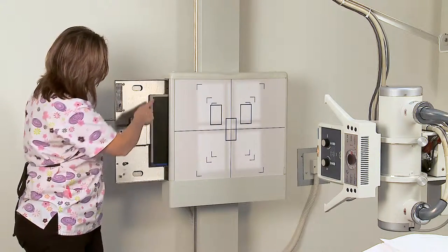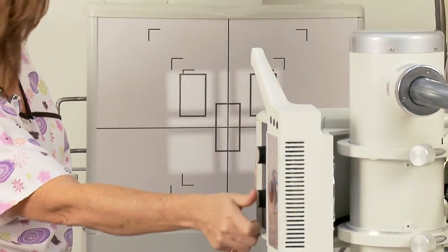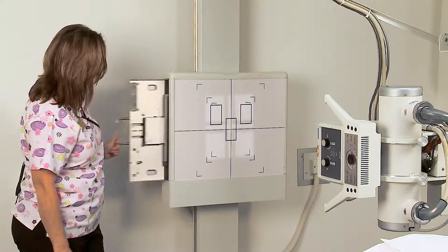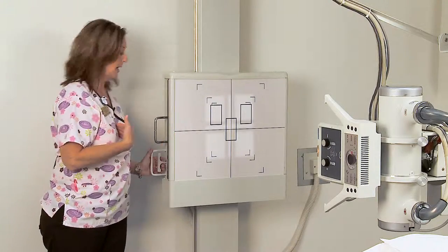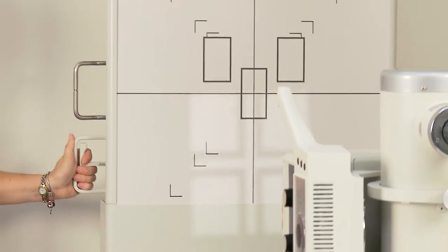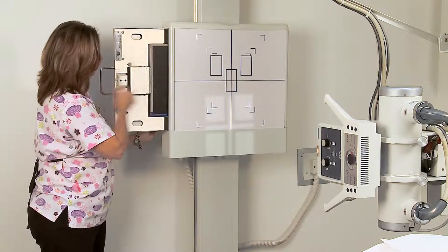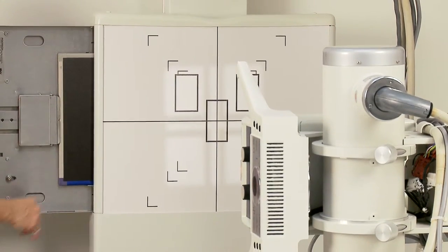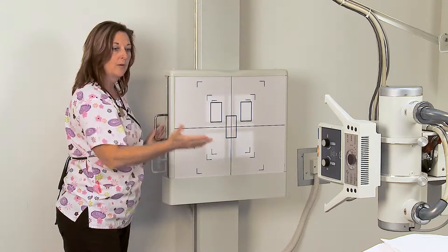Now we have changed our cassette to the 10 by 12 inch, which means we also need to collimate to the appropriate size. We have now made a smaller light field to represent the same size cassette placed in the upright wall bucky. You can move the upright wall bucky according to your patient's height by depressing the handle on the side and it will go up and down. You want to be tube-film aligned — the image receptor and tube need to be at the same space. The same applications apply for the upright wall bucky as for the table bucky.